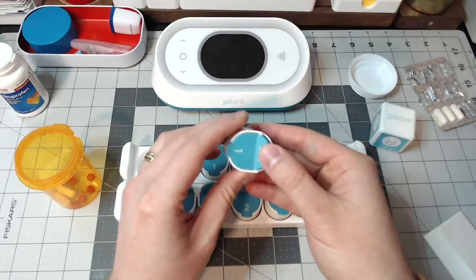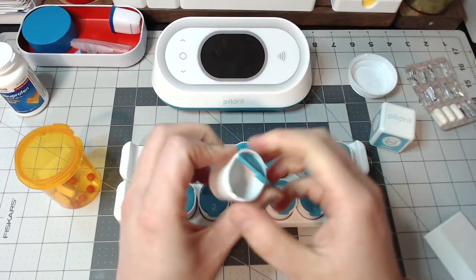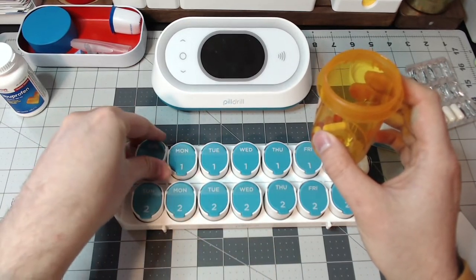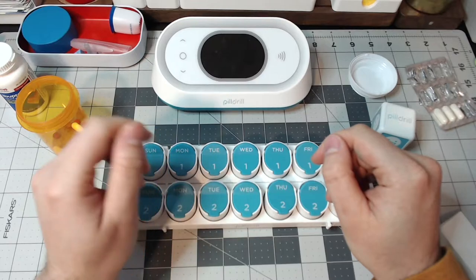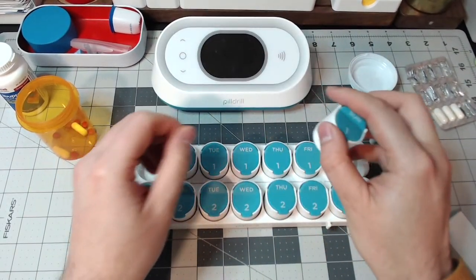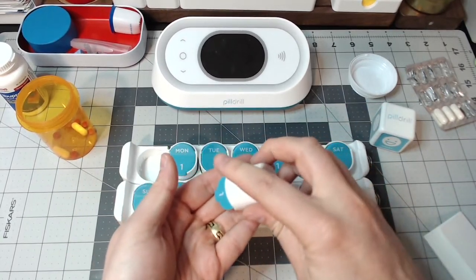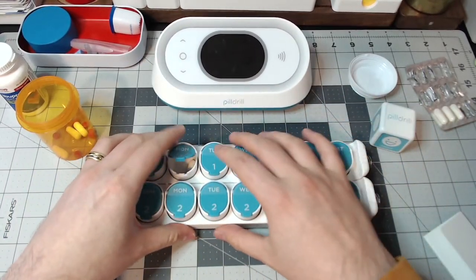As you reload them and open it, it just pops open like that and it locks. So you could basically say if this was my AM dose — let's suppose in the morning I was taking one tablet, one capsule. You put this in there, and what Pill Drill will do is the hub will start going beep, beep, beep. An alert is sent to your app reminding you. Then what you do is come back and scan this thing, and it would say 'dose taken.' The assumption is that if you scan it or activate the sensor, then you're taking the medication. You pop it, there's your meds, you take them, and you pop this back in. Throughout the entire week you have that.